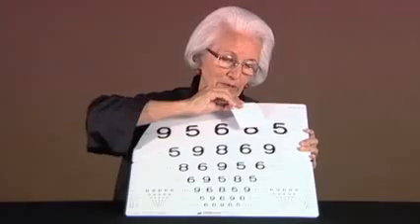We can measure the binocular visual acuity using the middle part and any one of these two sides. Then the monocular values by going down on one side first for the right eye and then the other side for the left eye. In the same way, with the lower line 4, we can go to the other part of the test.